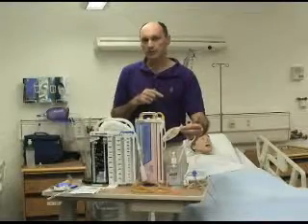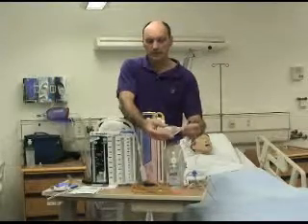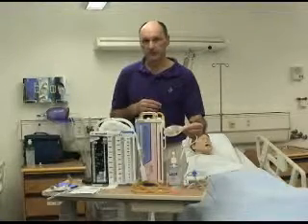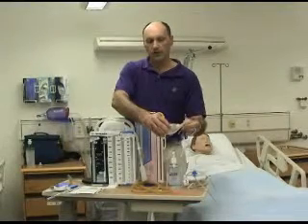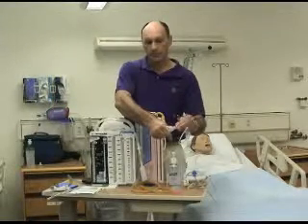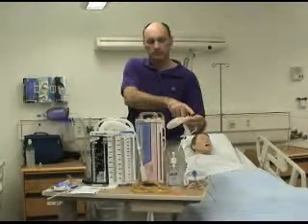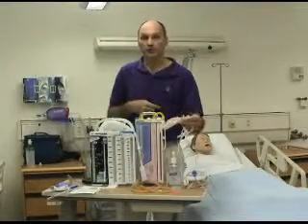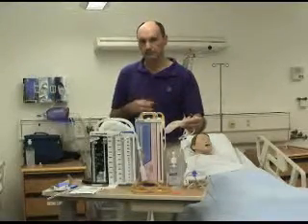But in the particular scenario, when the simulation starts, I have the suction off of it so that whenever the students perform their assessment of the patient, they should notice that the suction isn't being applied to the wound, and they are supposed to apply suction by squeezing the bulb, putting the cap on, and with the paper clip holding the end of the tube, it will keep the bulb from reinflating. So the students will then realize that that's the way it's supposed to be.